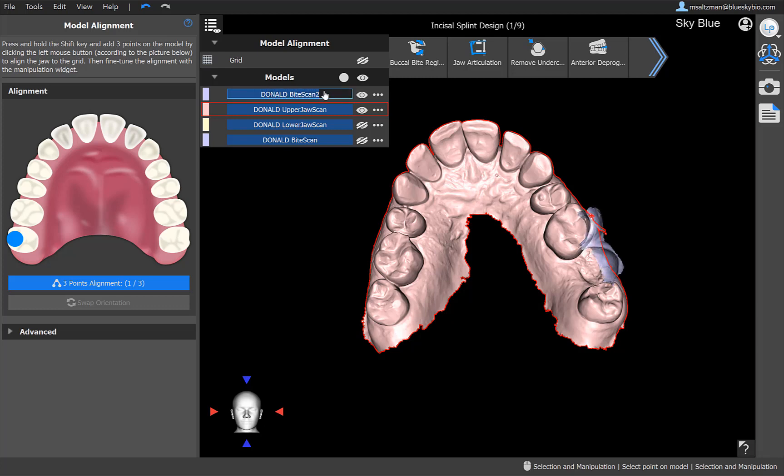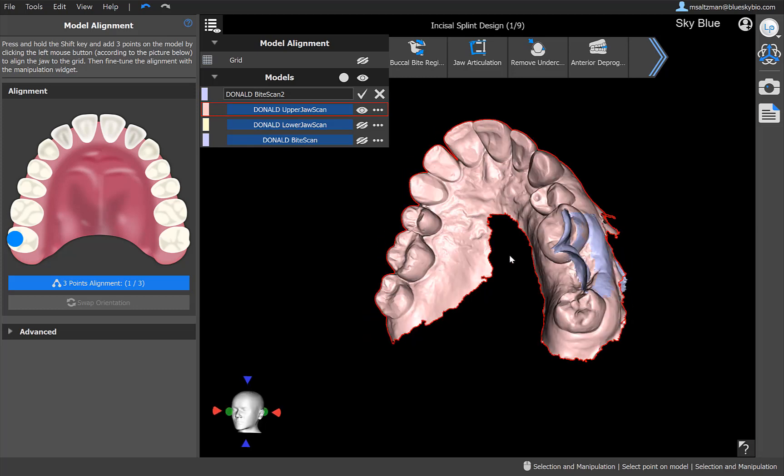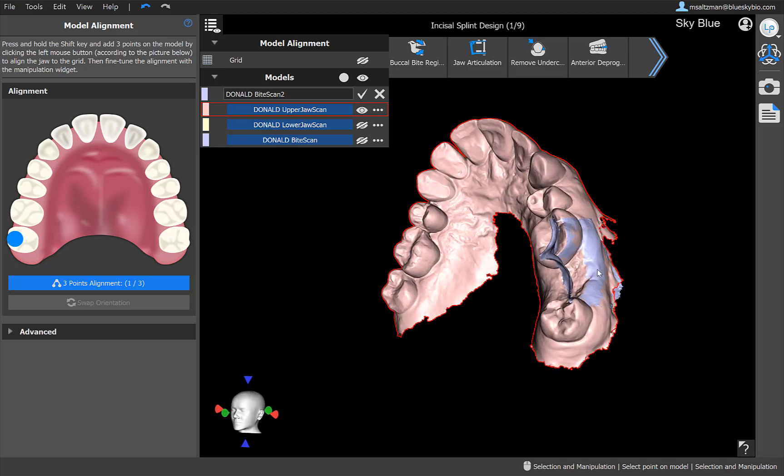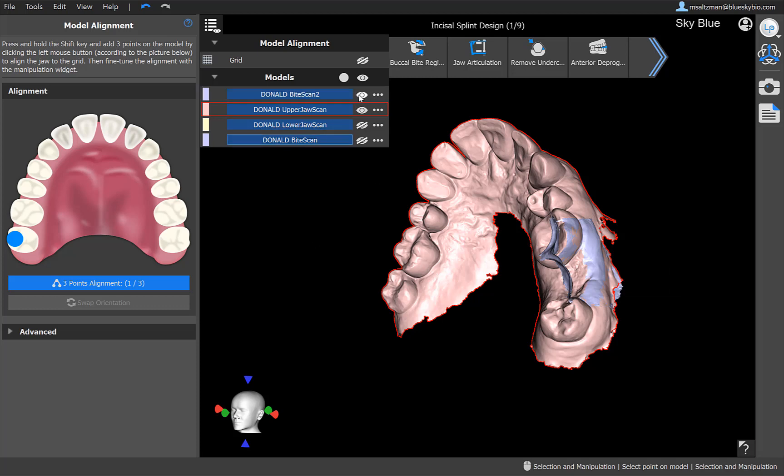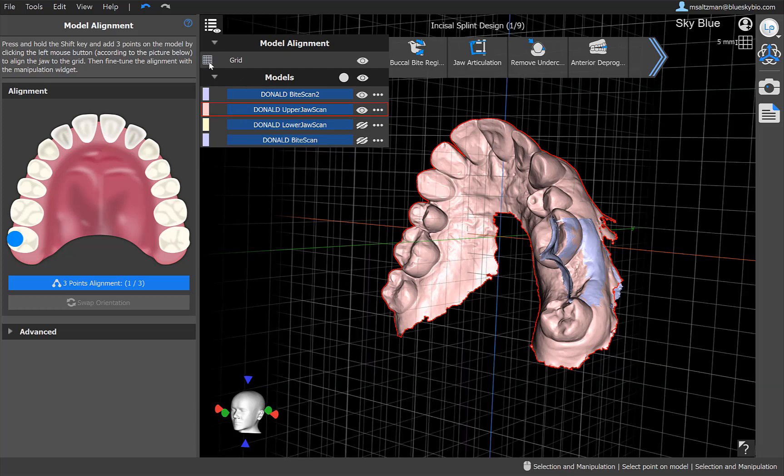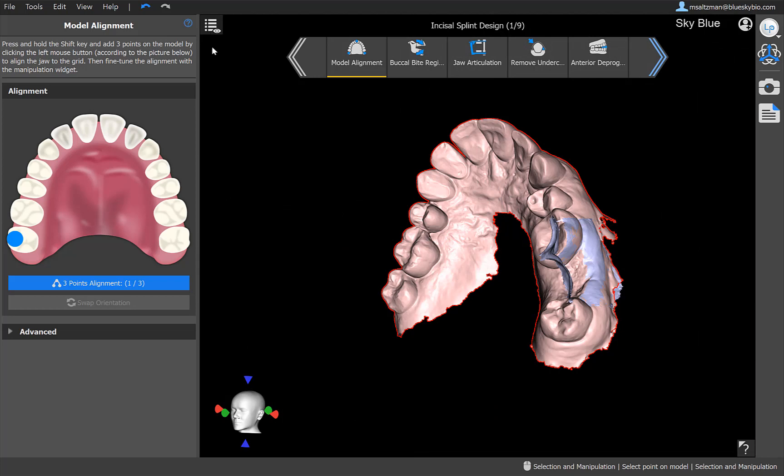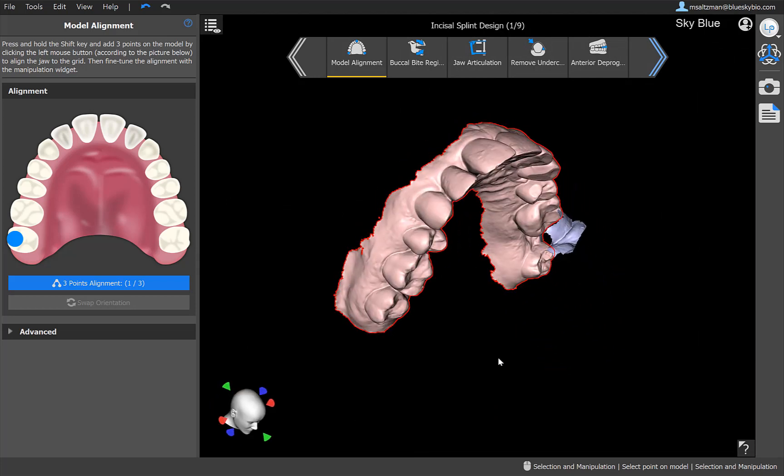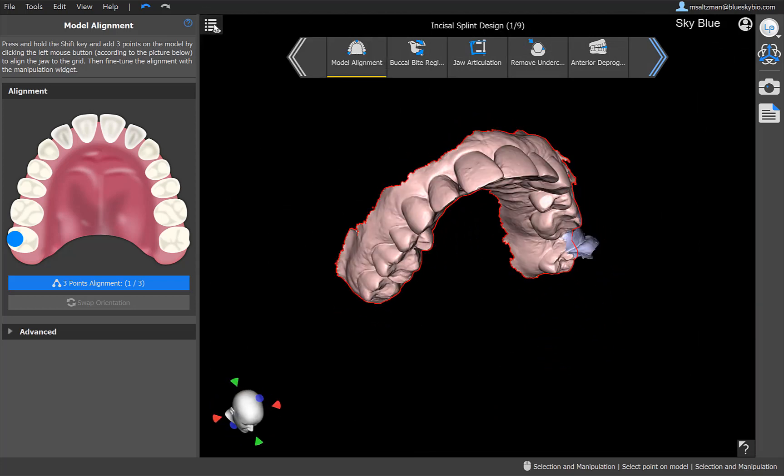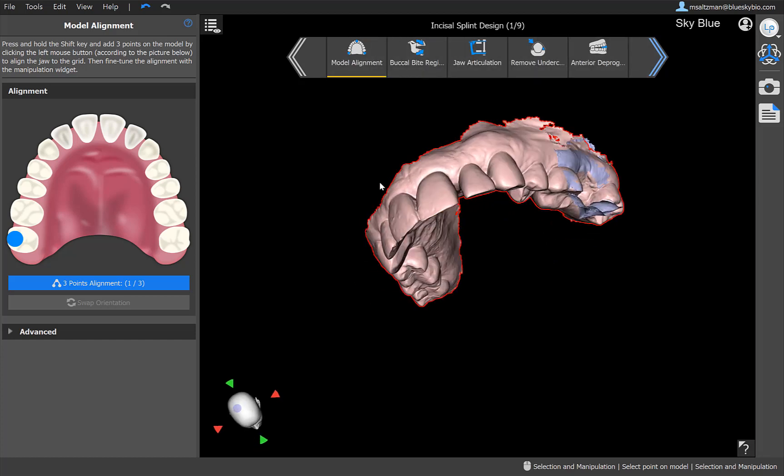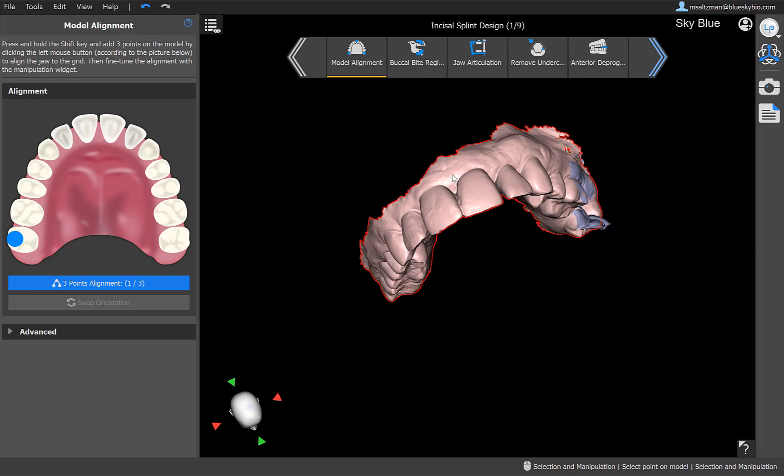While the visualization, in terms of visualizing the models and their colors and hiding them, you could control from right here. You could see, you could control the transparency of the particular model. You could toggle it on and off. You could change the name, you could change the color. Of course, a lot of functionality could be done directly from right clicking on the model itself. What you should remember at this point is anything connected to the surfaces, their colors, their names, and their visibility, and visibility in general, such as the grid, is all accessible from this drop down that we have right here.